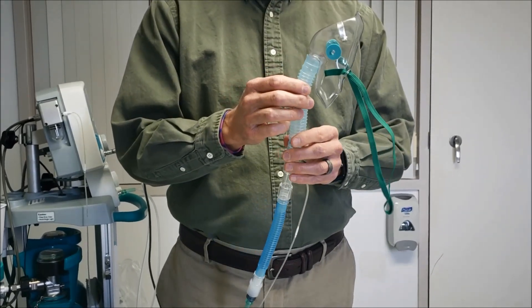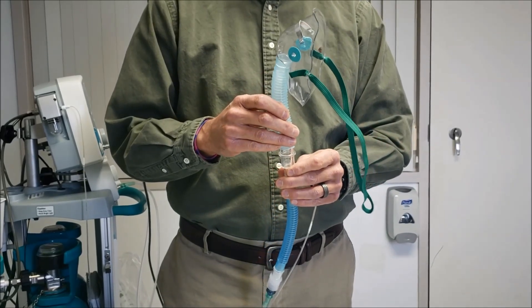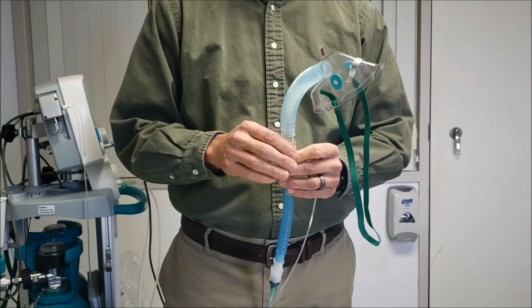The test runs for five minutes. Sometimes a physician may want you to go longer than five, but never exceed 10 minutes on the gas.